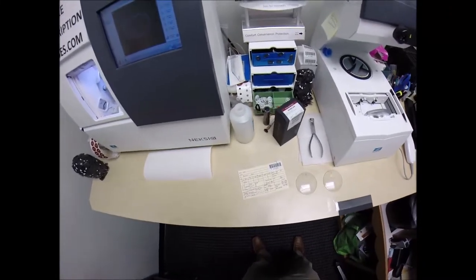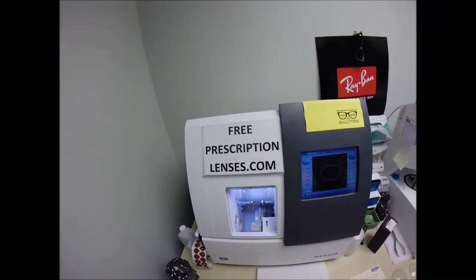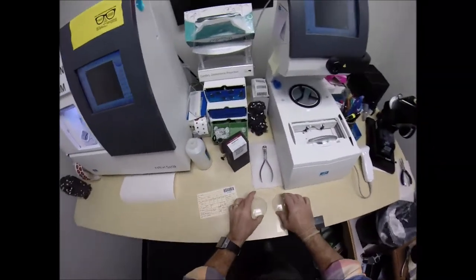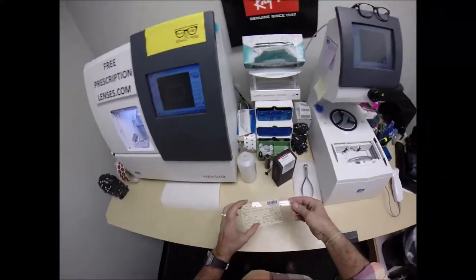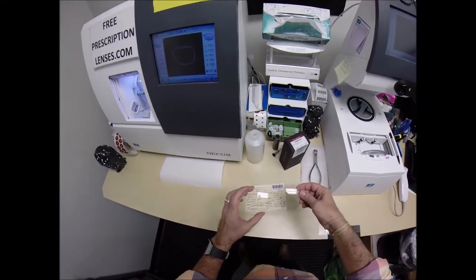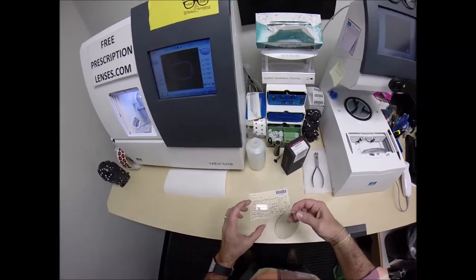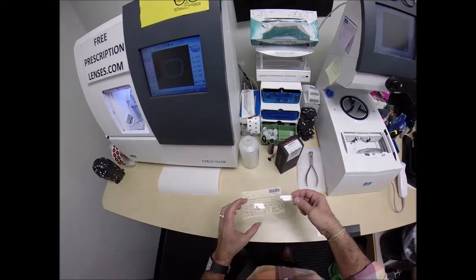Joe in Biloxi, Mississippi. See more better with freeprescriptionlenses.com. Today I get to make one of the coolest pair of reading glasses. These are invisible bifocals with no prescription in the top and just the full strength of the reading at the bottom.